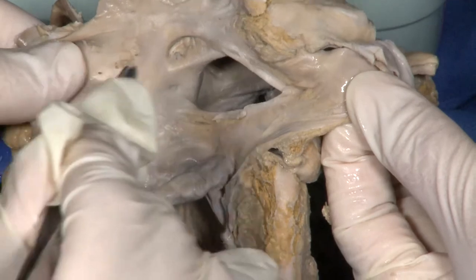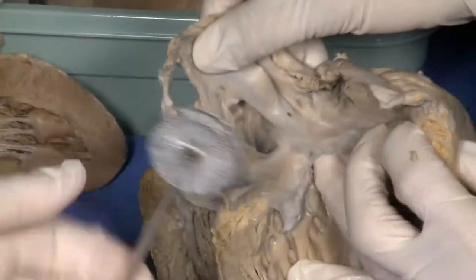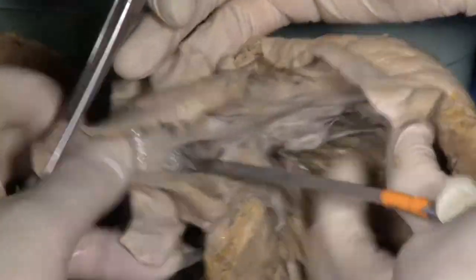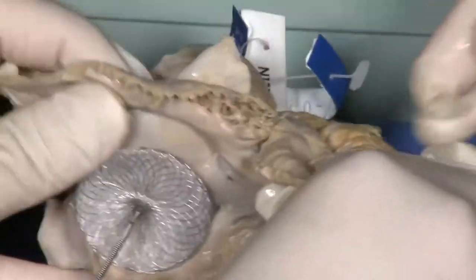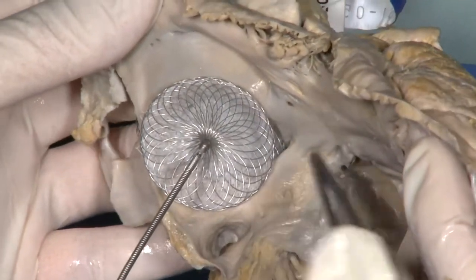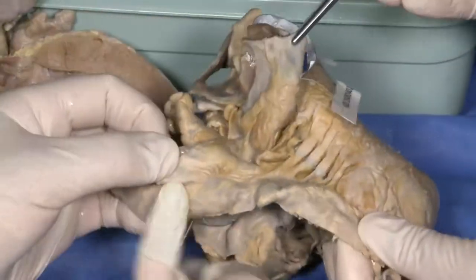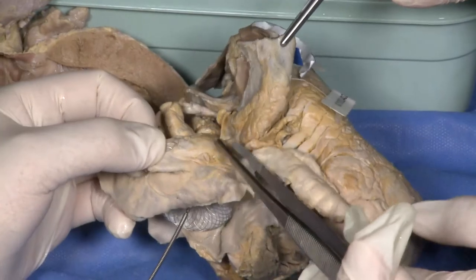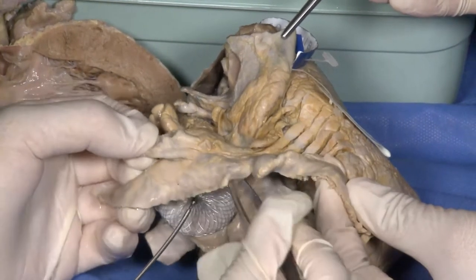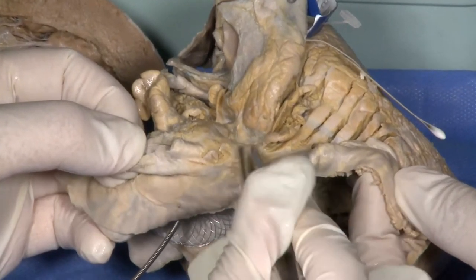What is the mechanism of erosion? We do not know. But when we insert the device and let it open like this, the ASD can be closed successfully even in a large ASD. However, this anterior portion irritates the posterior part of the aorta. Between the aorta and the atrium there is a transverse sinus. I experienced one case of aortic erosion where the device made a hole in two layers. It may be very rare, but it can occur.